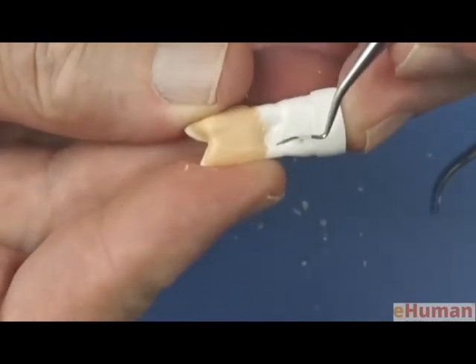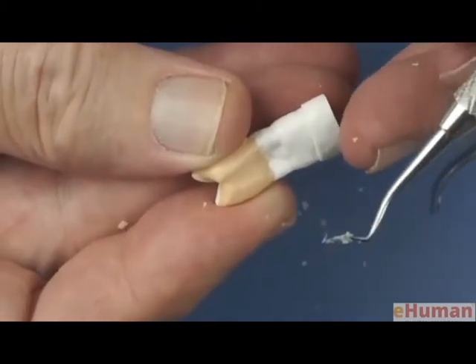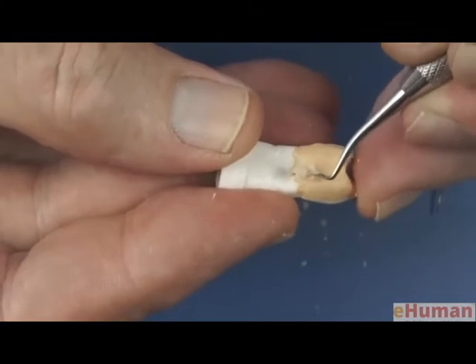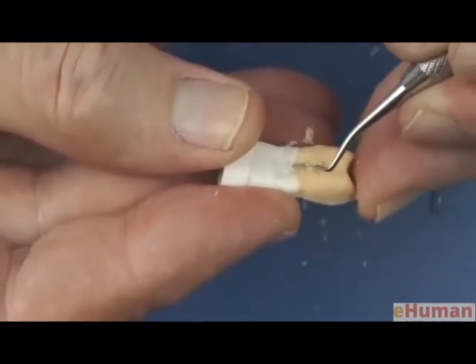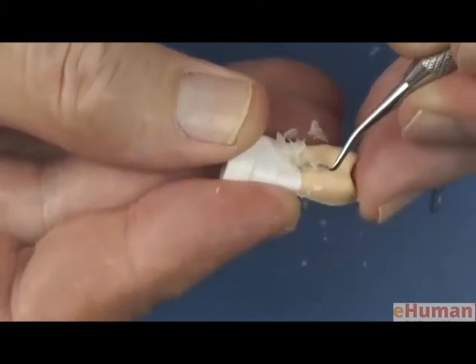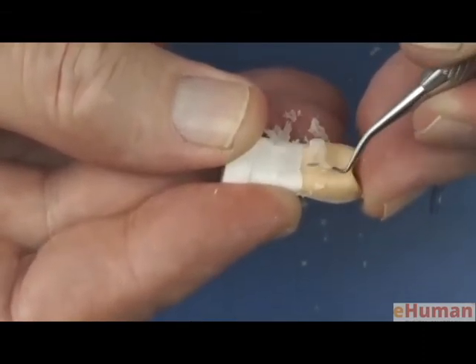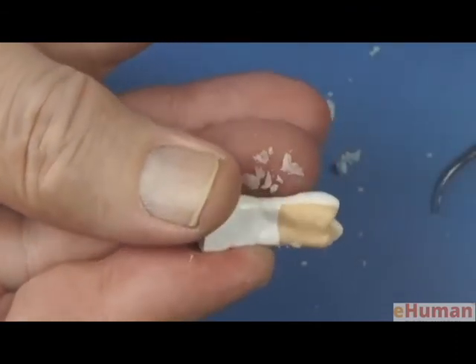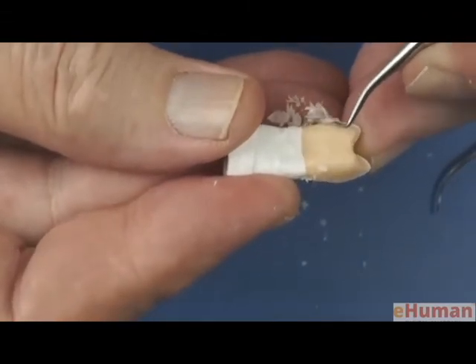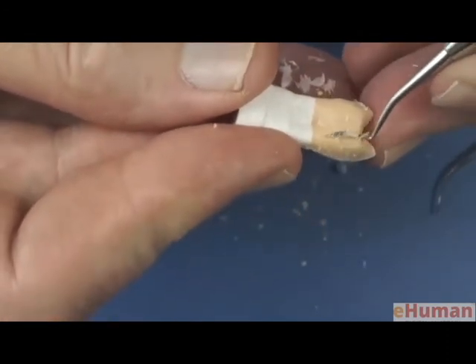And this is hard because you'll start running into the actual stand for this tooth. So you have to turn around and carve coming from the occlusal surface. So whenever the instrument runs into some piece of plastic, then switch around and carve from a different direction until you eliminate all the wax, and you'll see that automatically is starting to produce a substantial depression in the wax. And then we'll do a little smoothing of the transitions here, again from multiple directions to help us get it nice and smooth.